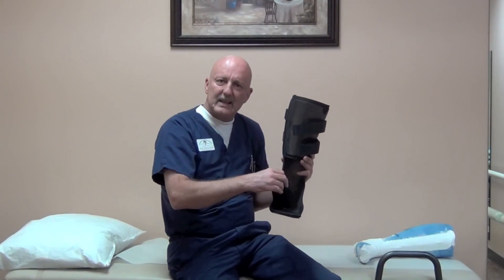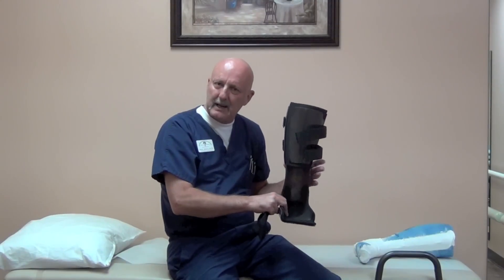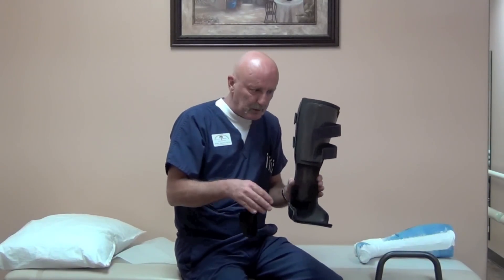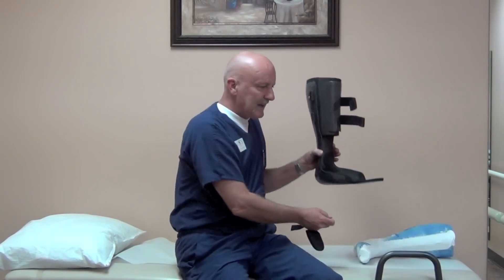The patient will regulate that. If the patient wants some weight bearing through the heel — say 50% or just enough to remove pain — they may not use the wedge. They may just plantar flex or push off with their toes to raise the heel up and strap it down. It will just take a little bit of time for the patient to realize exactly how high to raise it for that proper feel.